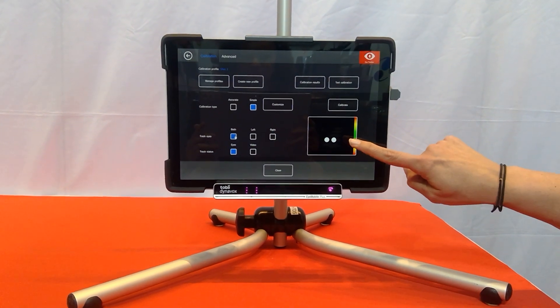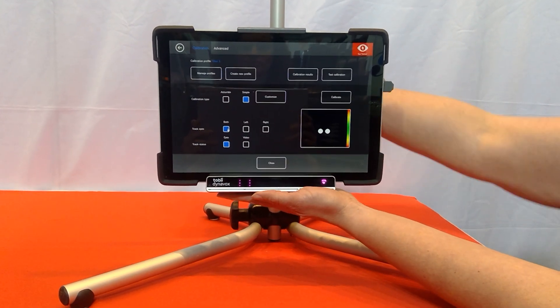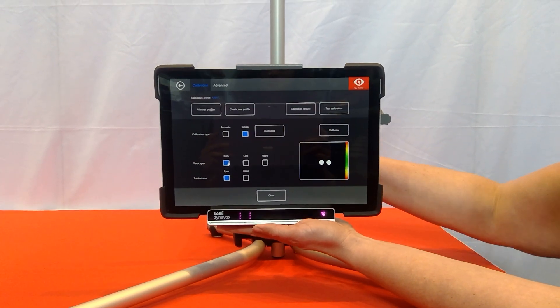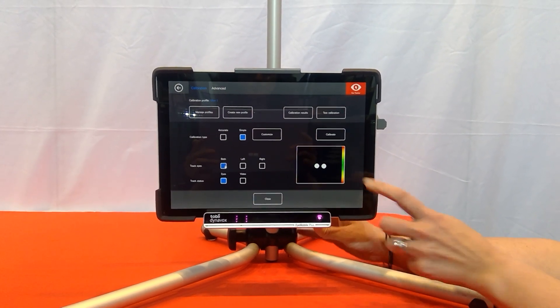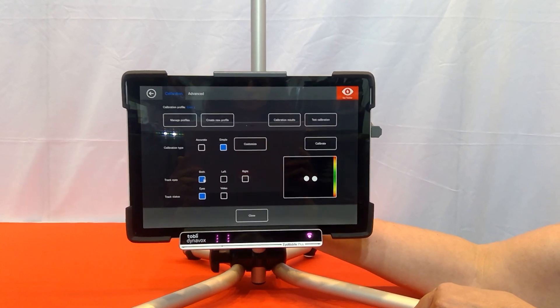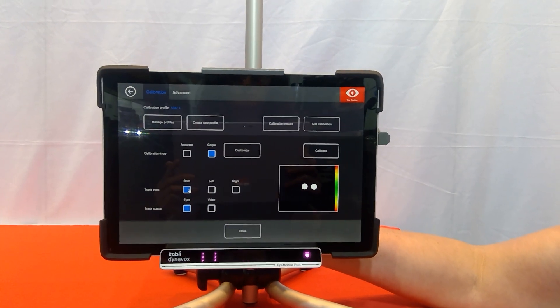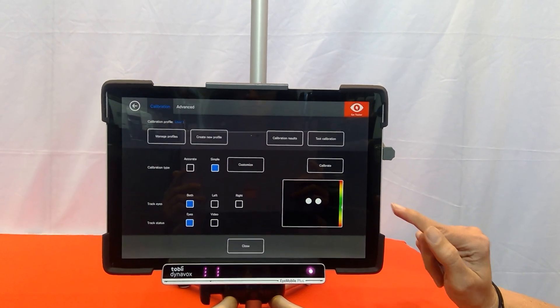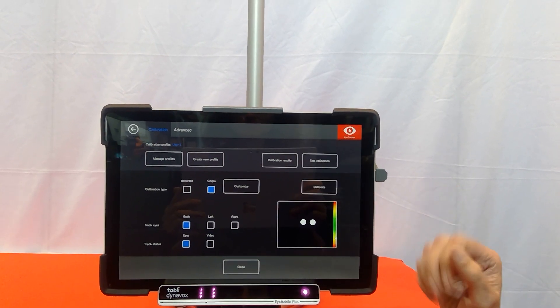So now we've got our two eyes a little bit further up in the track box, but I might adjust a little bit further. I'm moving towards the middle, and we also need to look at the indicator — we've got it at the bottom of the coloured strip. So I'm going to come closer in with the mount, and you can see that the arrow is actually coming up towards the green section, which is what we would like. So now we're in the perfect position for starting to use the eye gaze activities on the device.